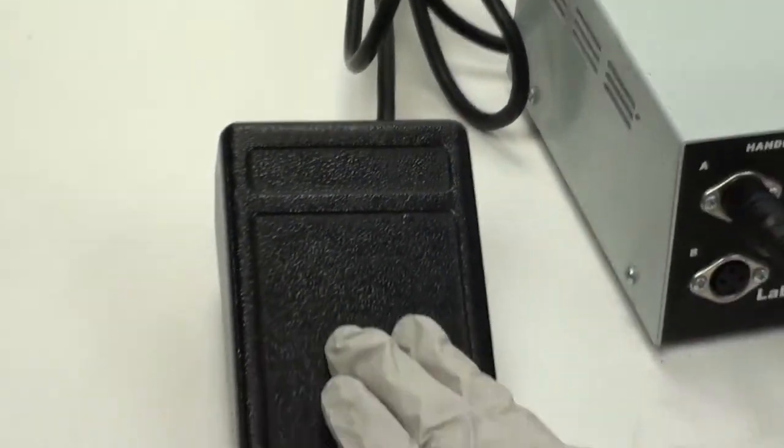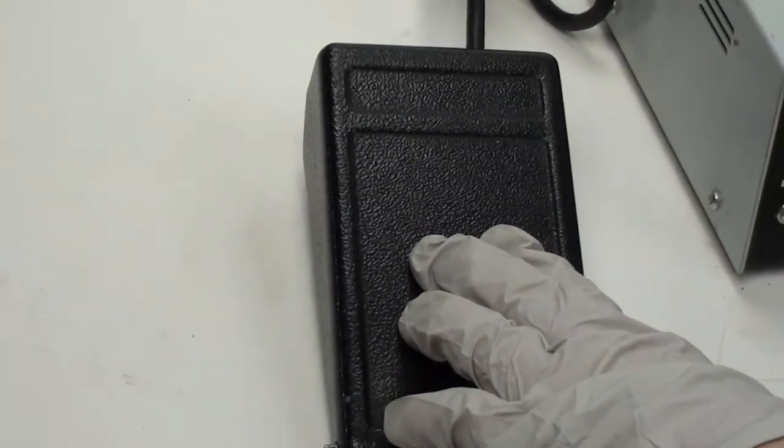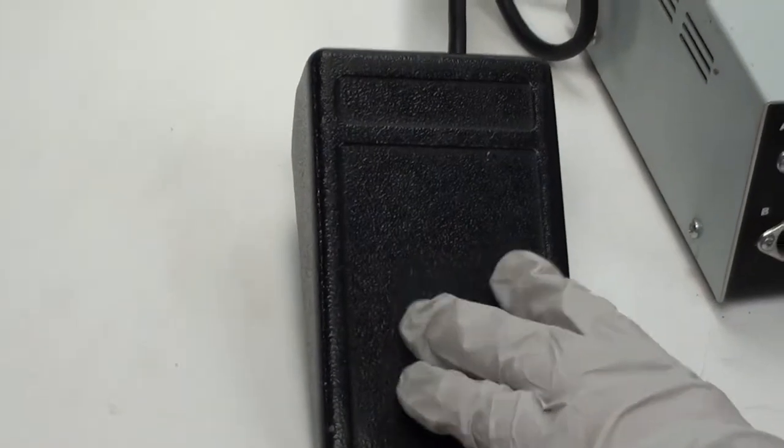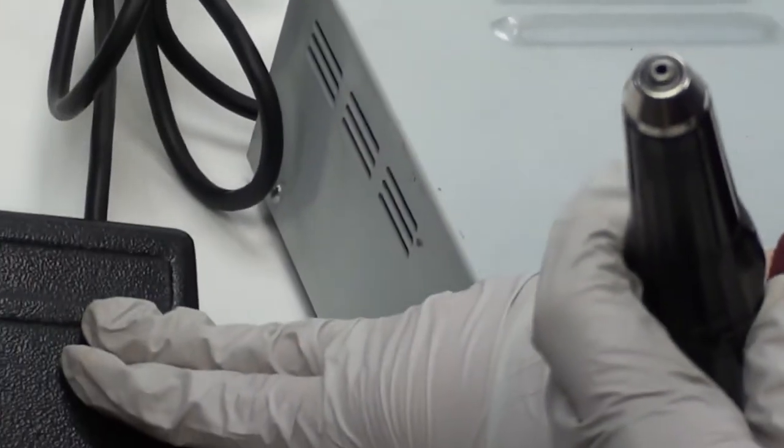Now I'm going to switch over to foot. With the foot pedal, if you are working with a patient, you can control it using the tap motion. Your pressure is what's going to create speed. The harder I press, the more speed will accumulate.